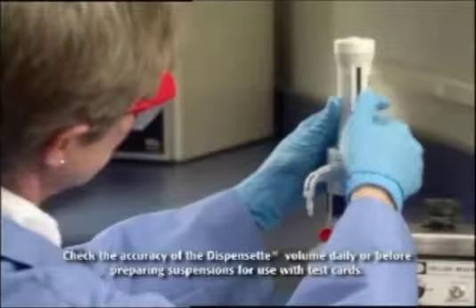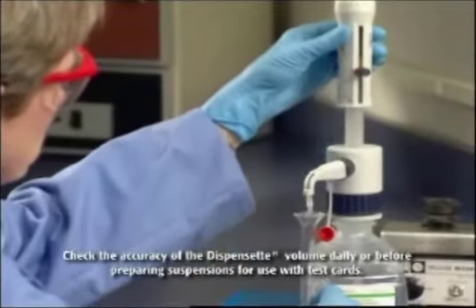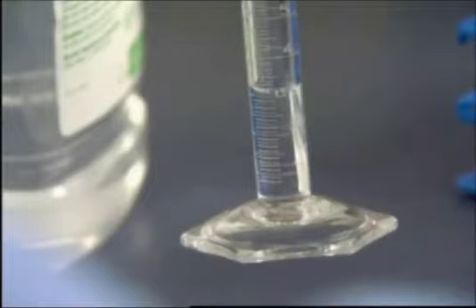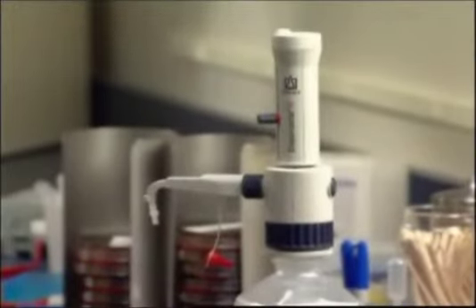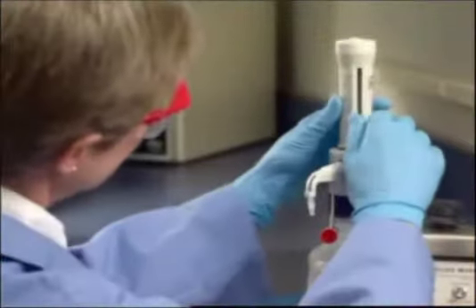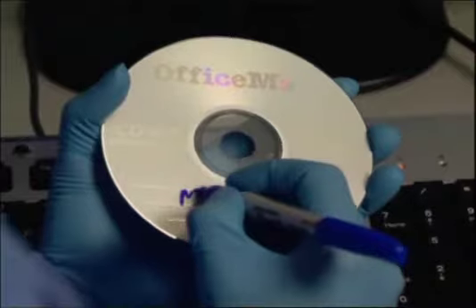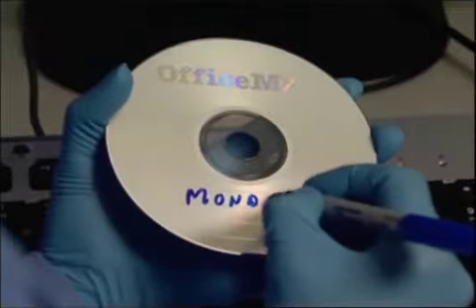Prime the 3 milliliter cylinder. Adjust the volume control as needed to ensure exactly 3 milliliters is dispensed each time. Check the accuracy of the dispensette volume daily prior to preparing suspensions. Set for 3 milliliters and dispense saline solution into a graduated cylinder. Label a disc for each day of the week and change the disc every day.